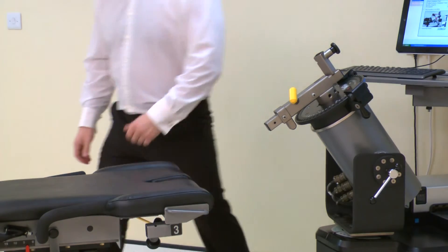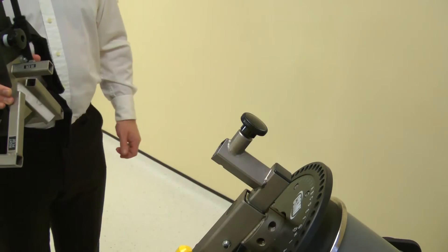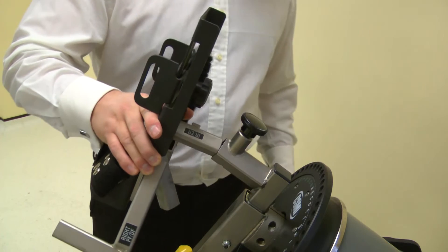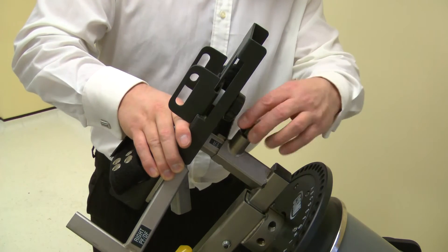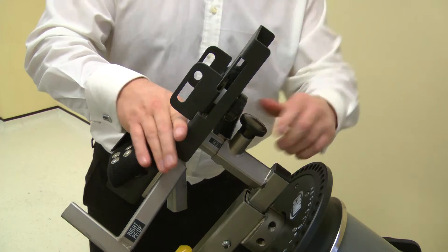Pull the locking pin to slide into place. Now attach the footplate to the ankle adapter using the IR slash ER point. Slide fully into place then secure with a screw.